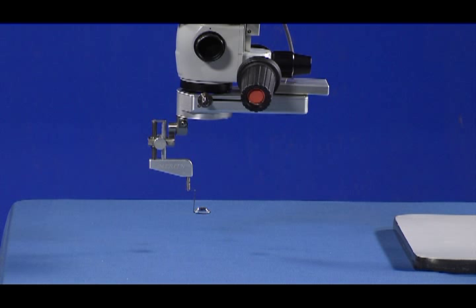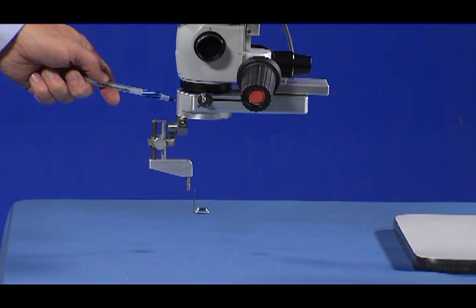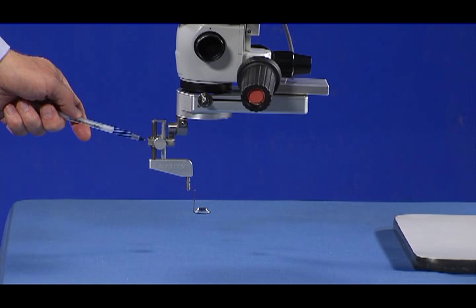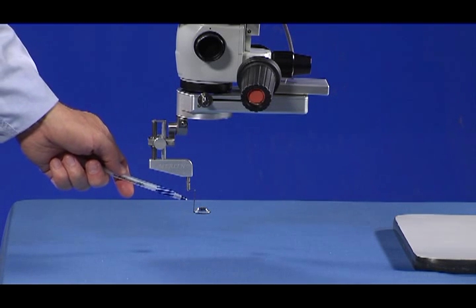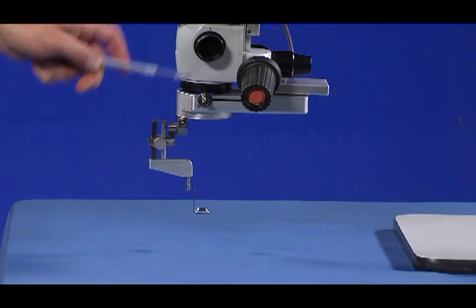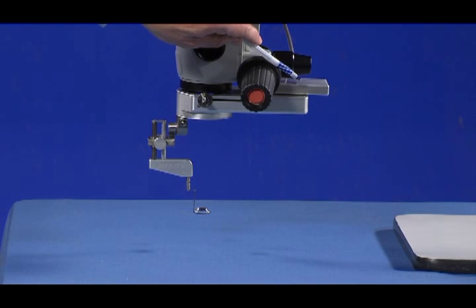The Merlin Surgical System Condensing Lens Assembly, or CLA, is available in either fully automated or manual models. When installed, the Merlin System is comprised of four main components: the CLA, the Lens Positioning Unit or LPU, the Non-Contact Surgical Lens, and finally the Mounting Hardware specific to the microscope being used.